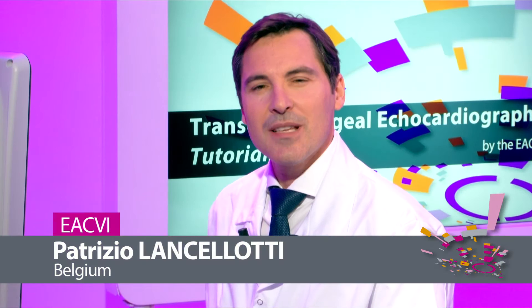During the next few minutes, I will show you the key features to be assessed in patients with primary mitral regurgitation related to degenerative mitral valve disease.